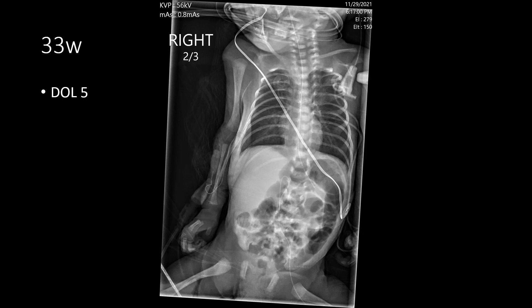Because the right upper extremity catheter was not well placed, another catheter was inserted from the left lower extremity. This catheter courses up through the common iliac vein to the IVC, but then takes a turn and folds back upon itself — it is looped back on itself. That is suboptimal: anything administered through that catheter will flow in a retrograde manner relative to the expected venous blood flow toward the heart, putting the patient at risk for phlebitis or thrombophlebitis. That catheter should not be used and needs to be repositioned.